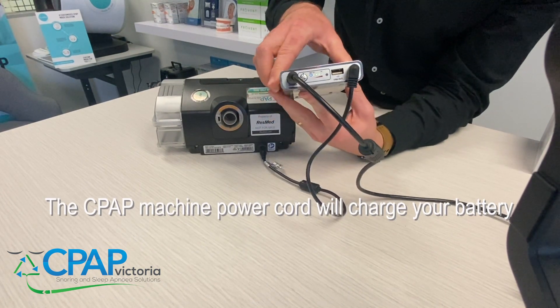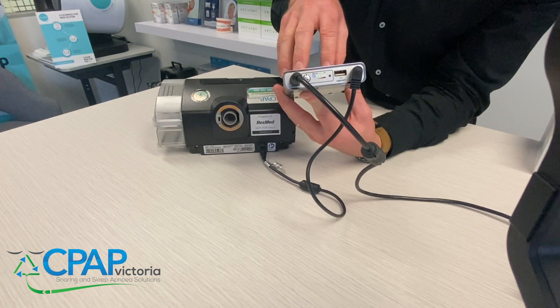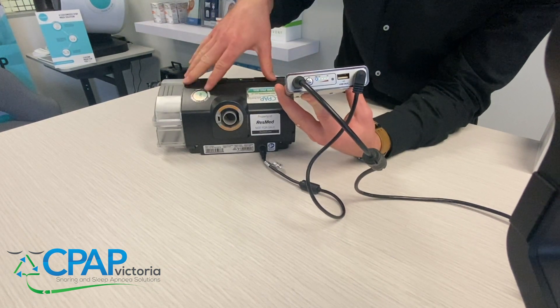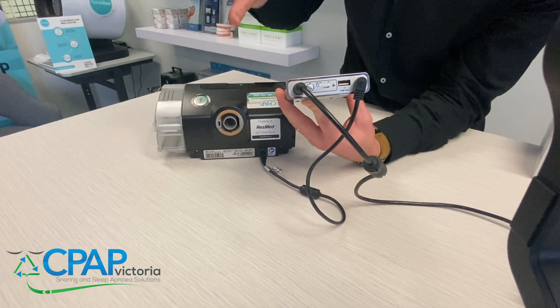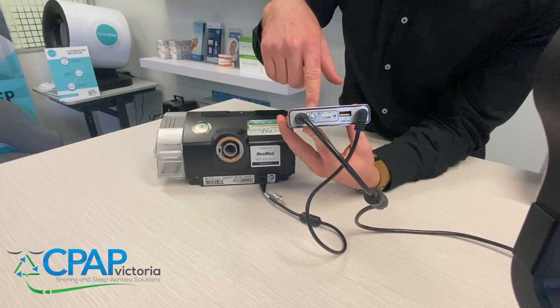This will act as a backup circuit — it's not going to actually use the battery power, it's going to bypass it straight into the cord to power your device. Any time the power goes out in your house, it'll kick in straight away with the battery power.